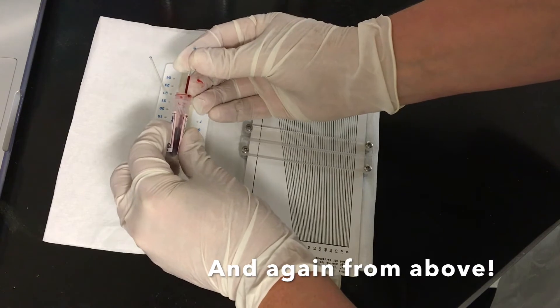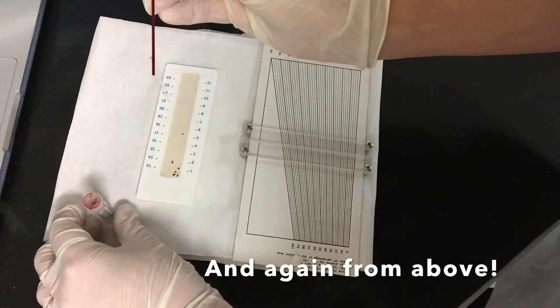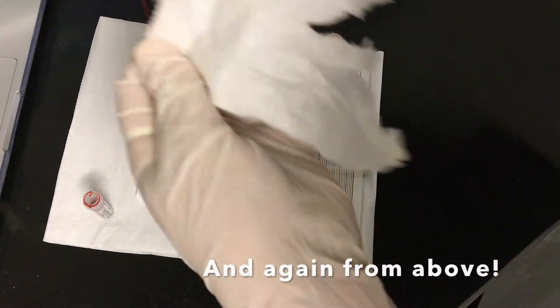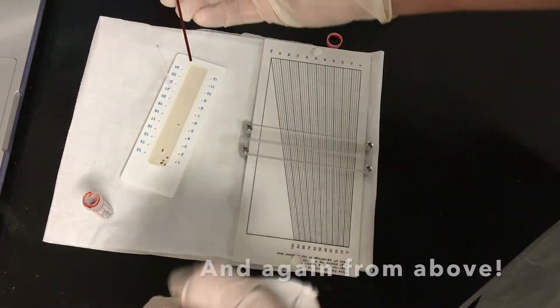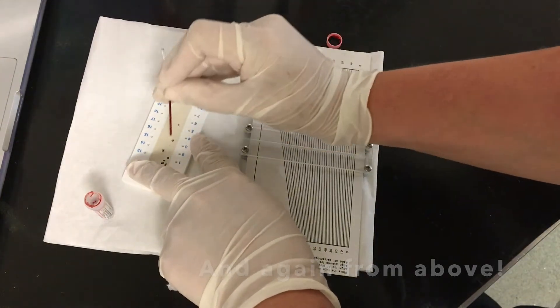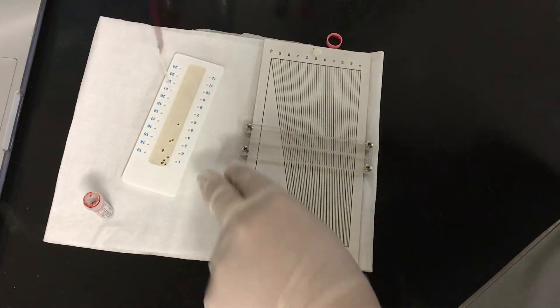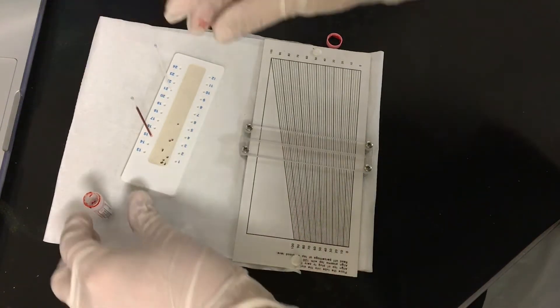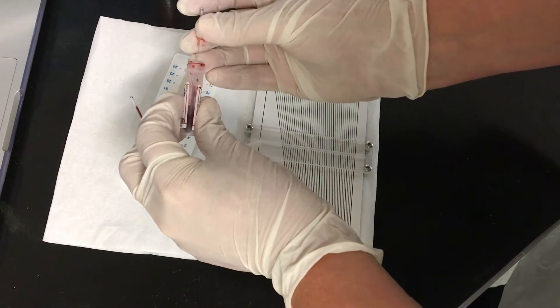About three quarters full, so I'm going to hold, wipe, and press and put that back in, and then I am going to repeat for a second one.